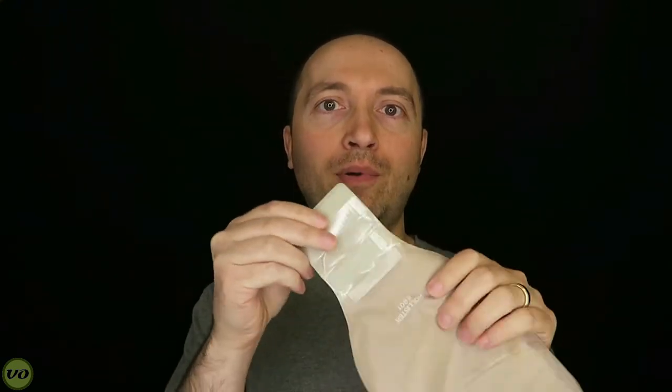As with other Hollister products, I tend to be very harsh on the fabric, and it's no different here. Hollister tends to use very thin, cheap fabric material. One problem is it's pretty easy to see through when you have output in there, especially when the pouch is wet. It also tends to fall apart, fray, and come apart as you wear it. If you're wearing your appliance for more than three days you'll really notice that, and one key part where the fabric fails is on the outlet that you tuck in.